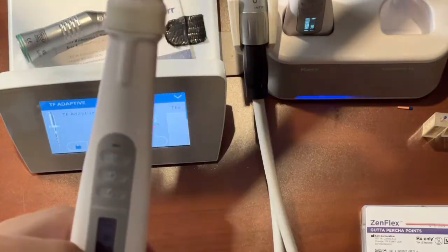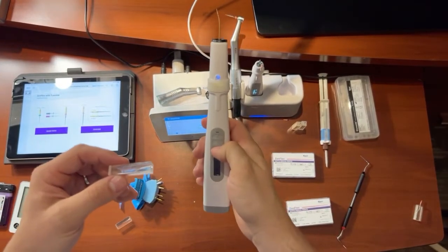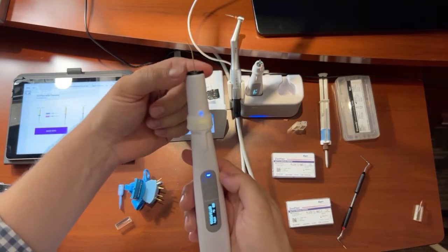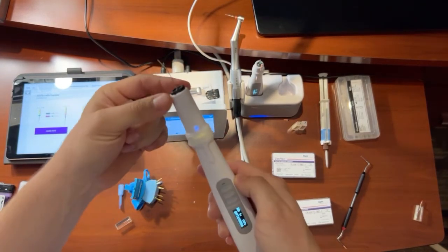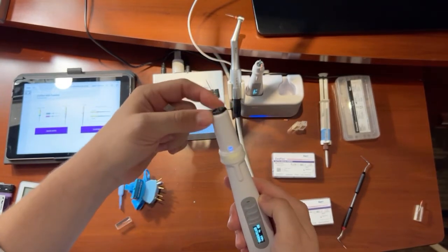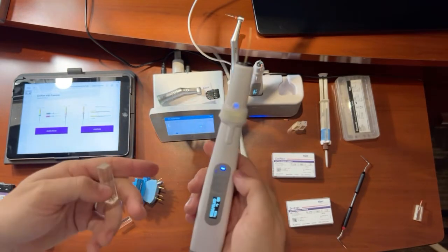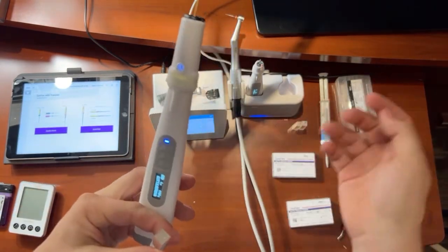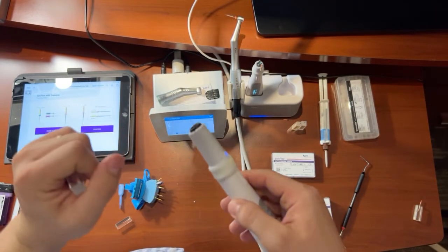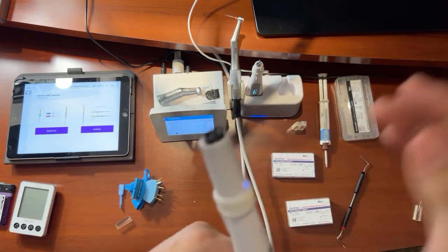But if you want to fill it up with gutta percha, next you're going to use this backfill unit here. So we zoom this out. Now I'm going to turn this on. It's going to start to blink blue, so we're starting to heat up, okay? It has a little tip in there. It's a gutta percha cartridge, and there's a lever arm inside that's going to move up and down and push that gutta percha out. So no mess, no hassle, very easy to use. The tip is extremely bendable, as you can see. You can spin that thing in a circle and it won't break.